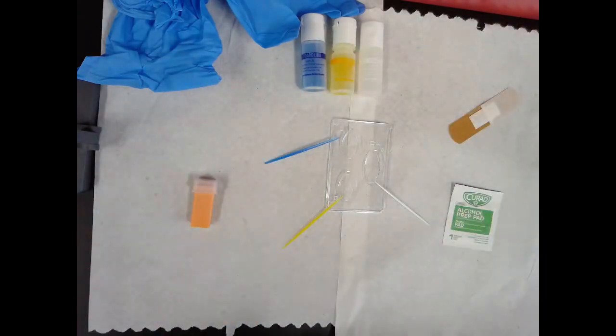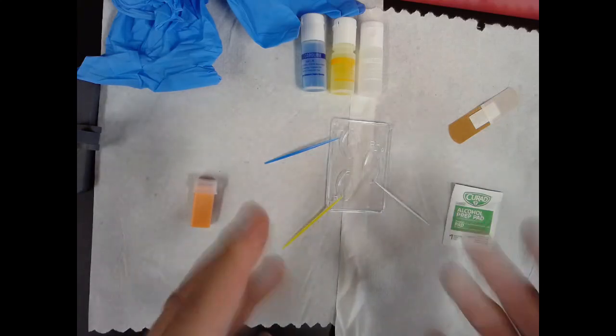As you can see, I've got these supplies laid out here, and I'm going to kind of walk you through step by step as to how to do it. But first, just a brief explanation.